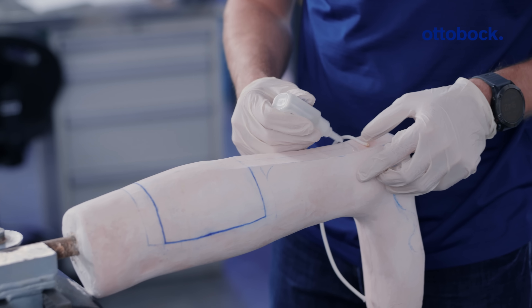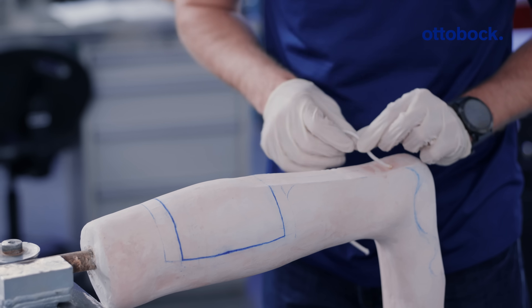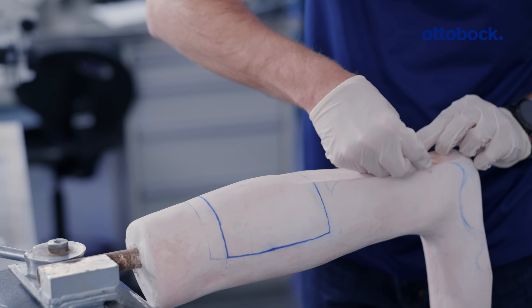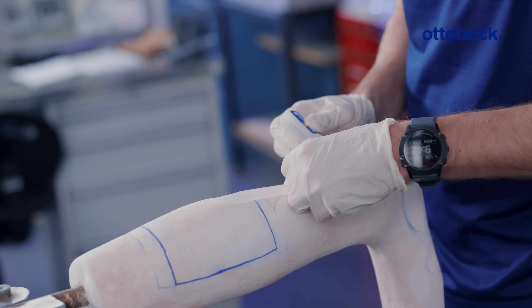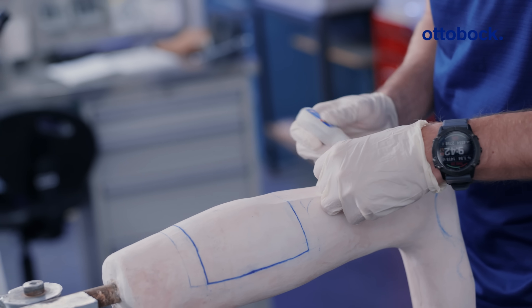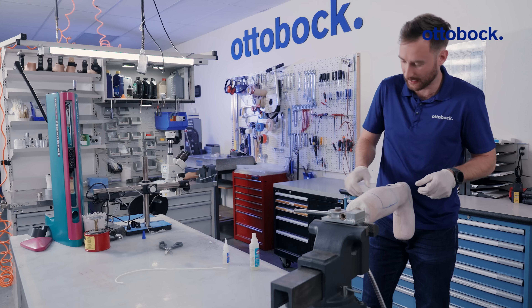As I mentioned, we're doing a zigzag shape here, and the closer together the curves are, the stronger the corrugation will be. This is a great technique to use if carbon fiber is not available, and you need to make a thermoplastic device that has lots of rigidity and strength for patients that need that control and support.